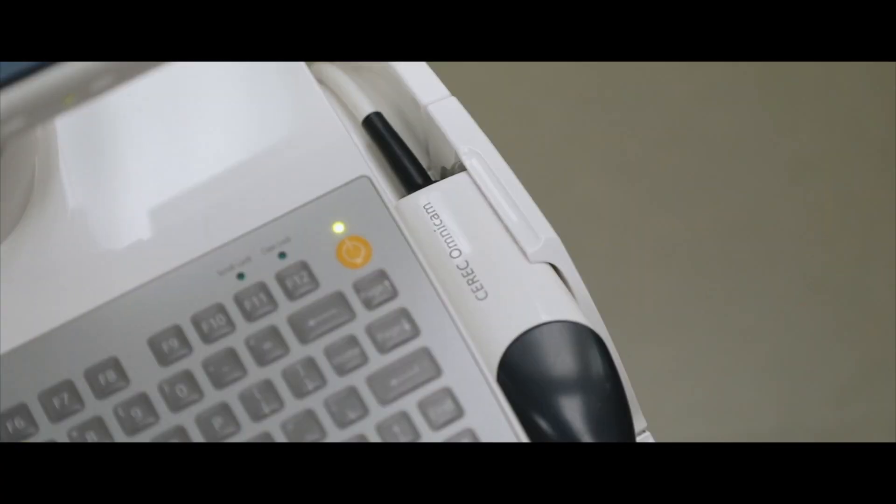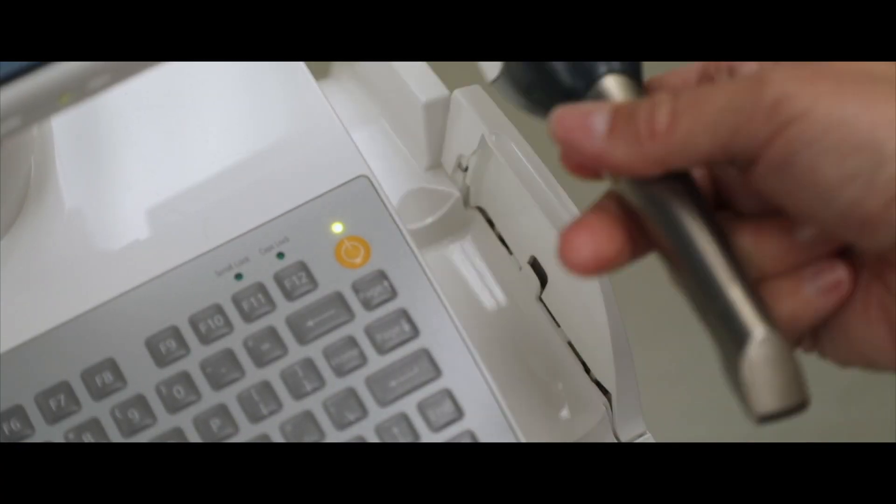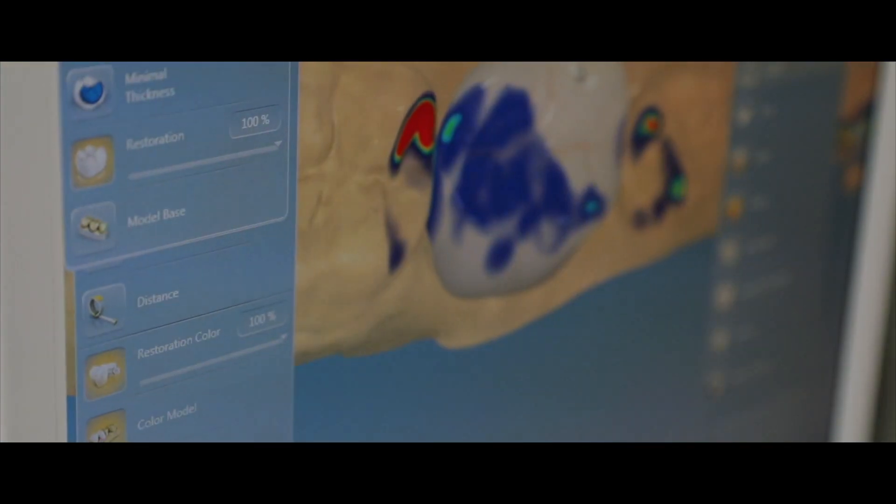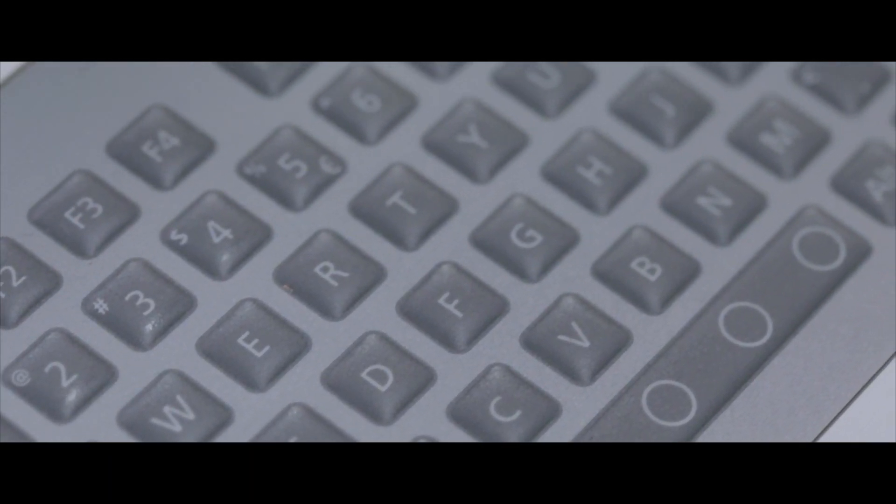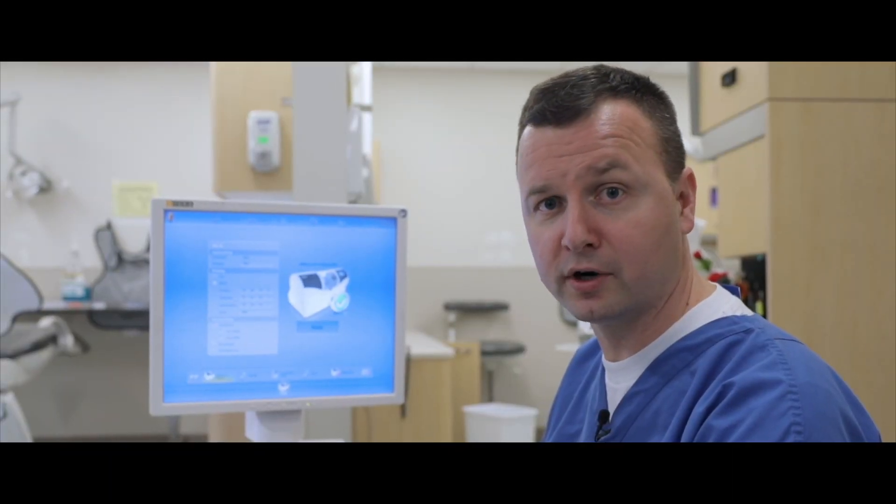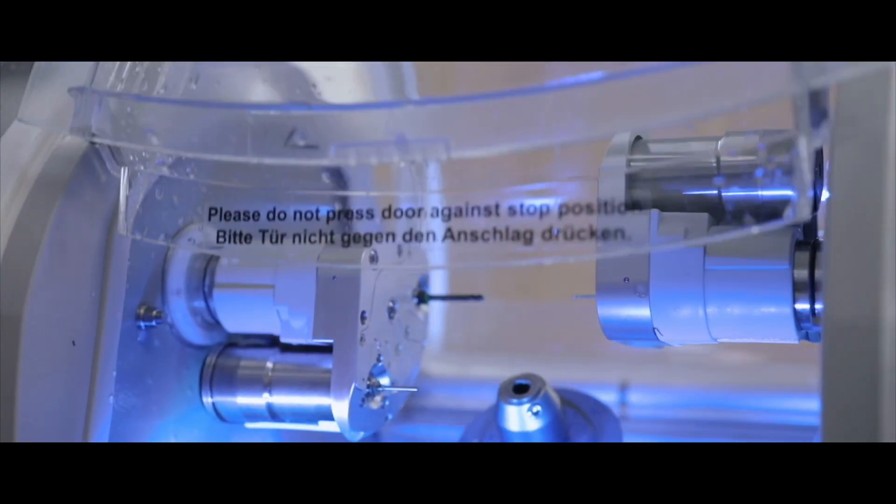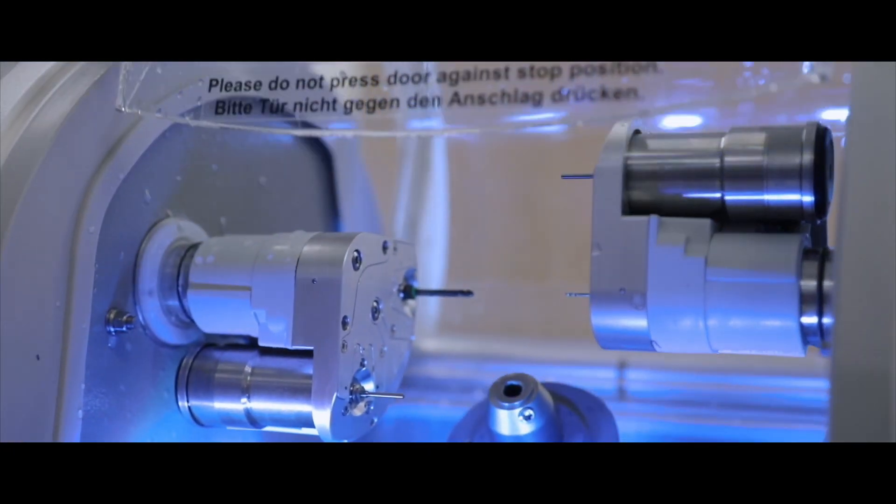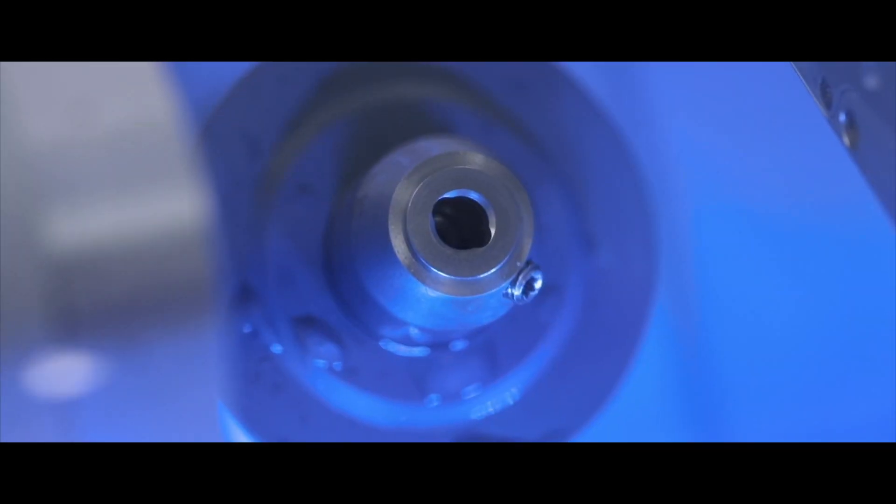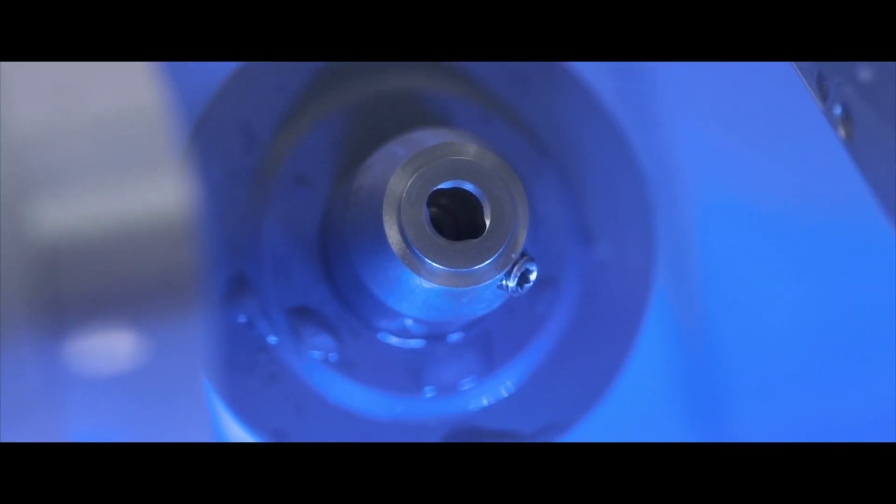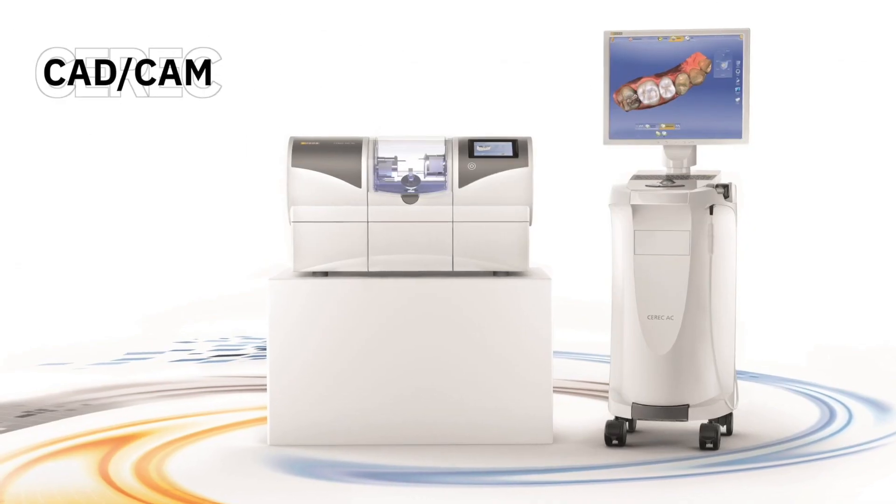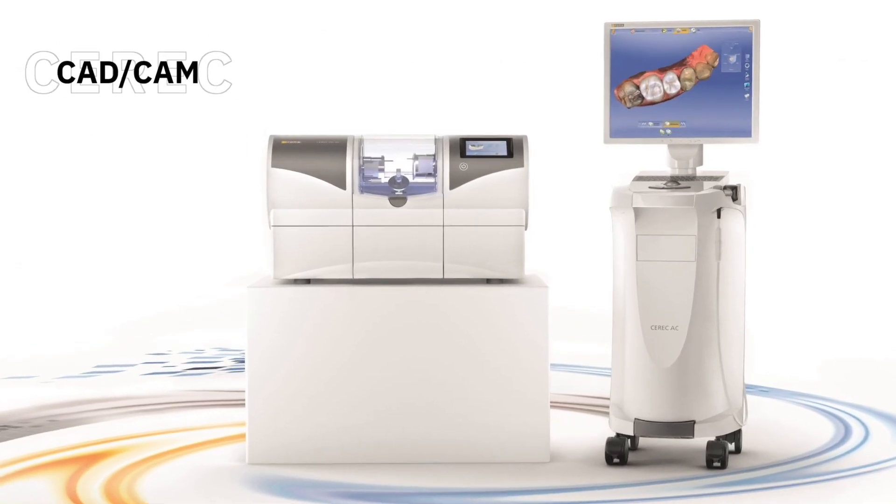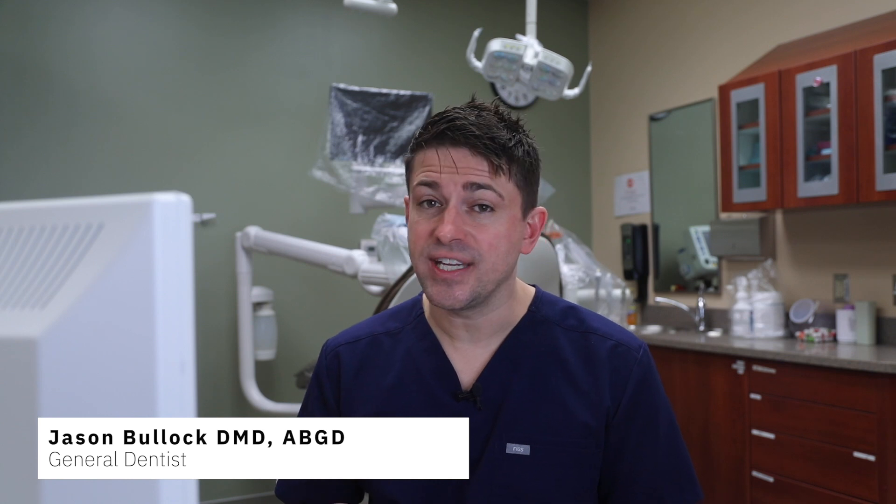This video is brought to you by S.T.A.L.A. Hello and welcome to this video introducing you to CEREC CAD/CAM technology. My name is Dr. B, and in this video we are going to do a walkthrough of the CEREC Acquisition Center with Omnicam and CEREC software.